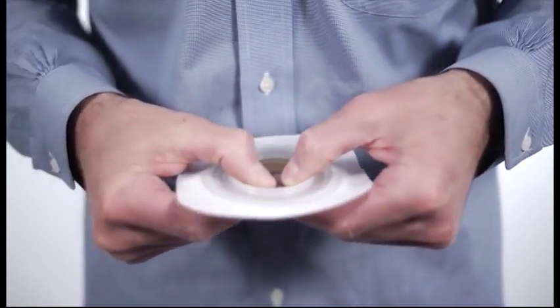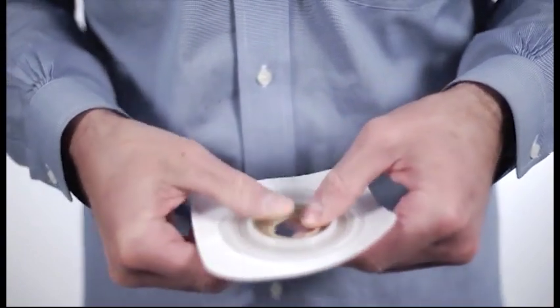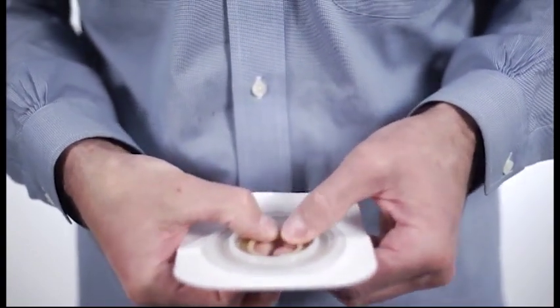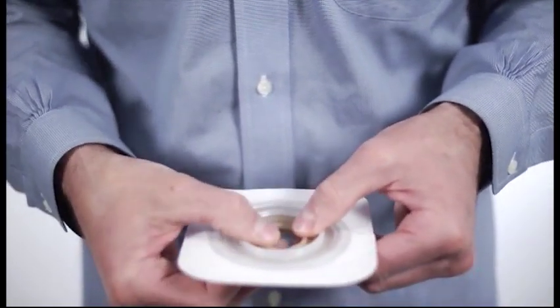Before removing the clear or opaque plastic release liner on the back, place your thumbs or fingers at the center of the starter hole and begin to roll the adhesive back.